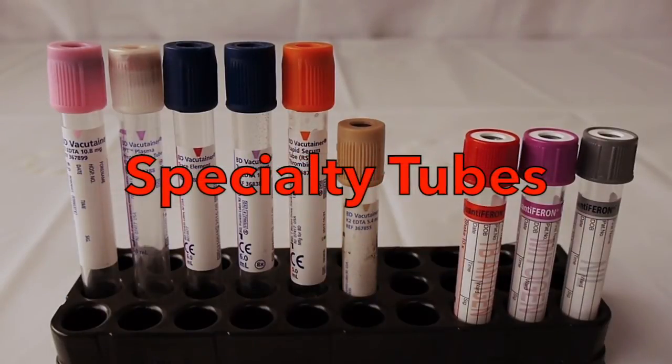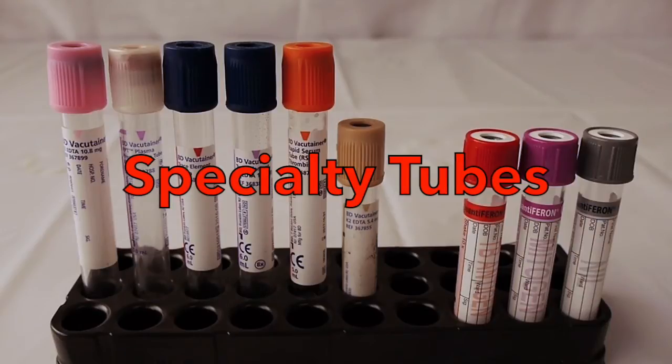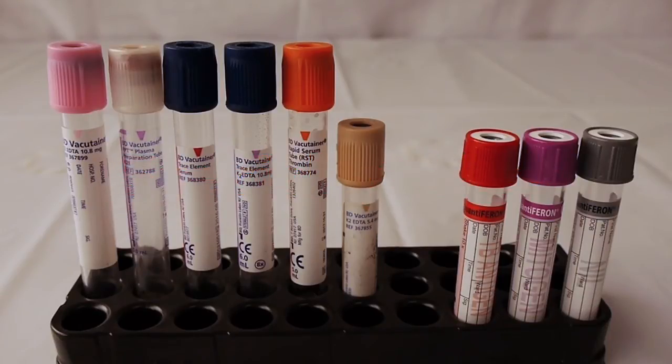Today we're going to talk about specialty tubes. As you can see in the rack here, we have a number of tubes, and even though we have an order of draw, these tubes are rather exempt from that.